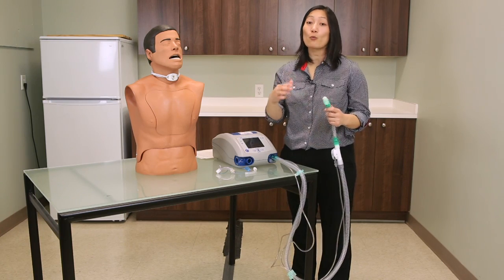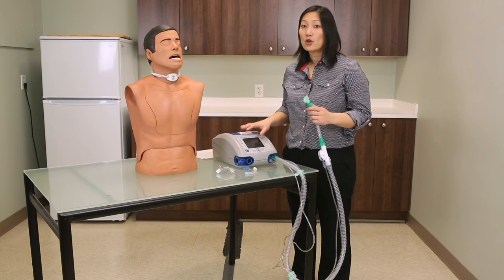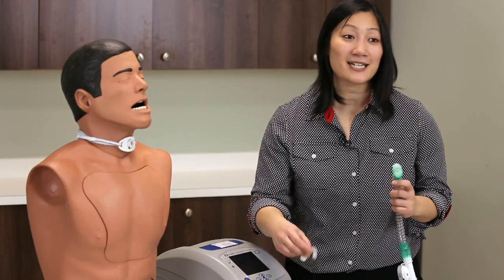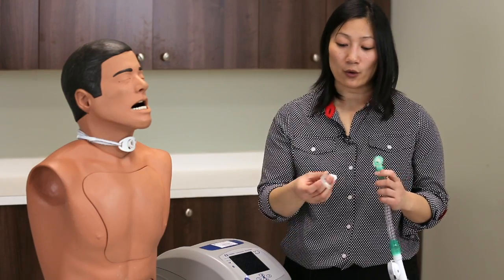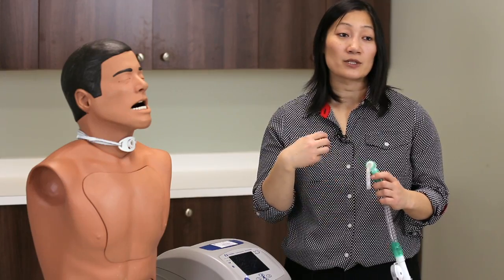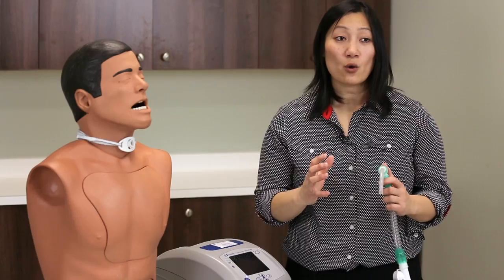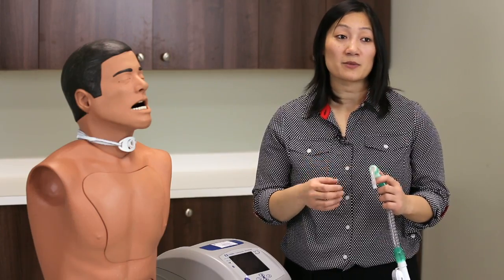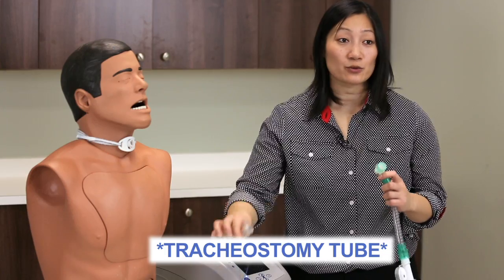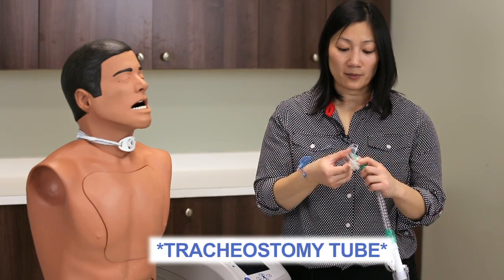To appropriately set your low pressure alarm, take your ventilator circuit and attach it to your inner cannula, which is the most narrow part of the circuit. If you don't have a tracheostomy that has an inner cannula, you can attach the actual tracheostomy instead.